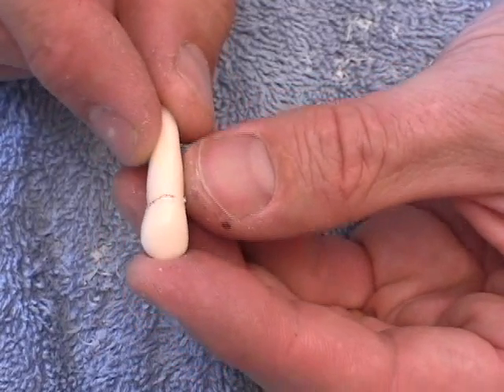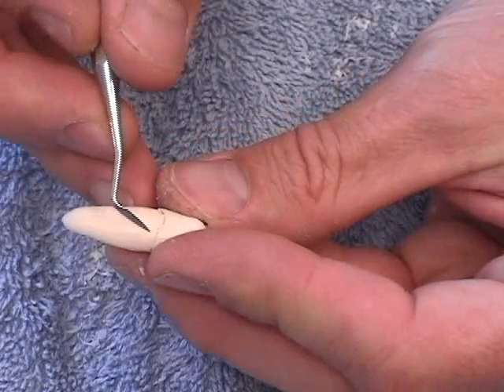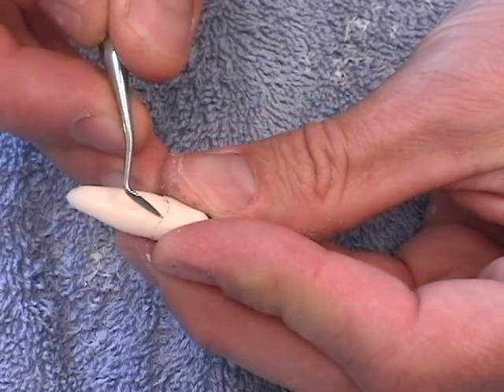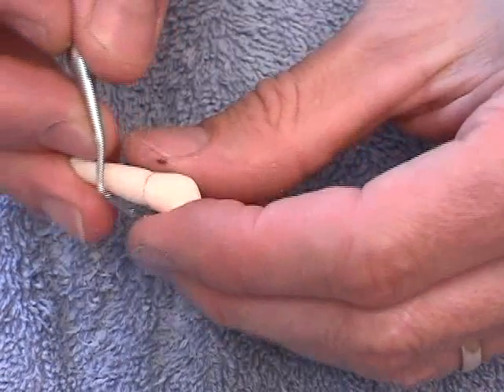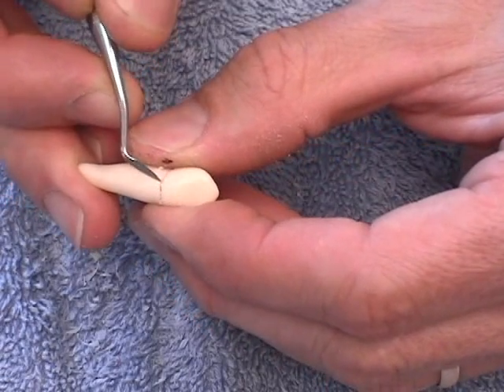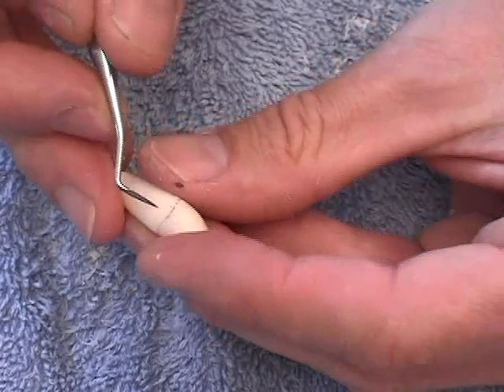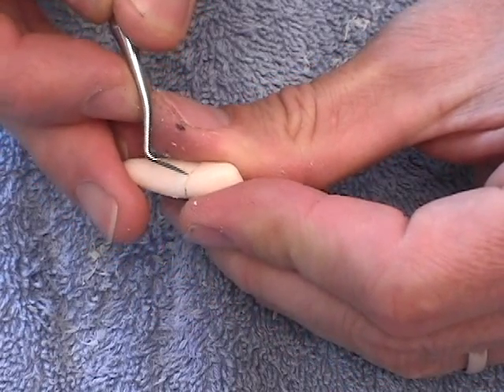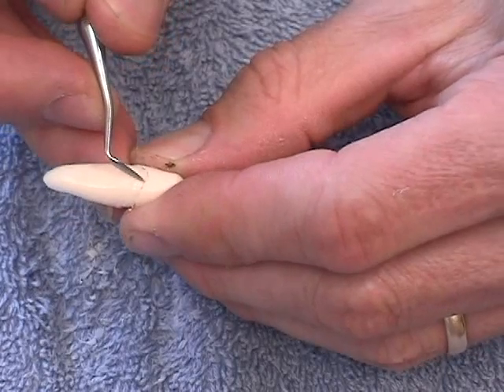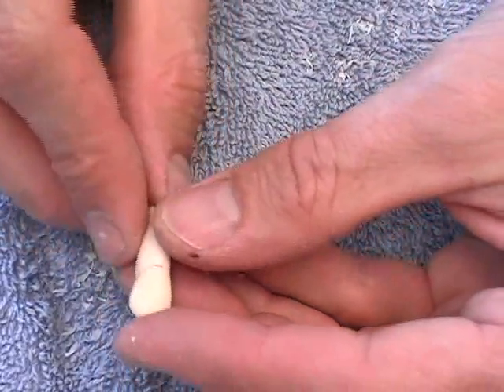It's a very faint line. I'm going to come back with a Cleoid Discoid or a Hollenbeck and delineate it a little bit more sharply, just following that line around. Eventually I don't want a sheer drop like I'm carving here — as I polish, that's going to be smoothed in at the transition. But for right now it'll be a tenth of a millimeter drop-off. So there's our cementoenamel junction. I'm just going to leave that dark line on there for now.